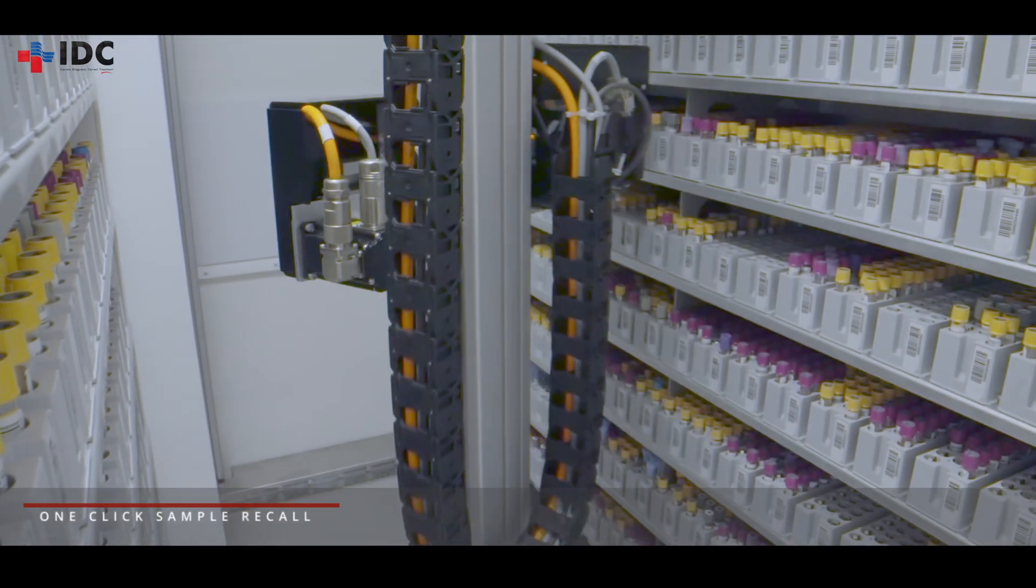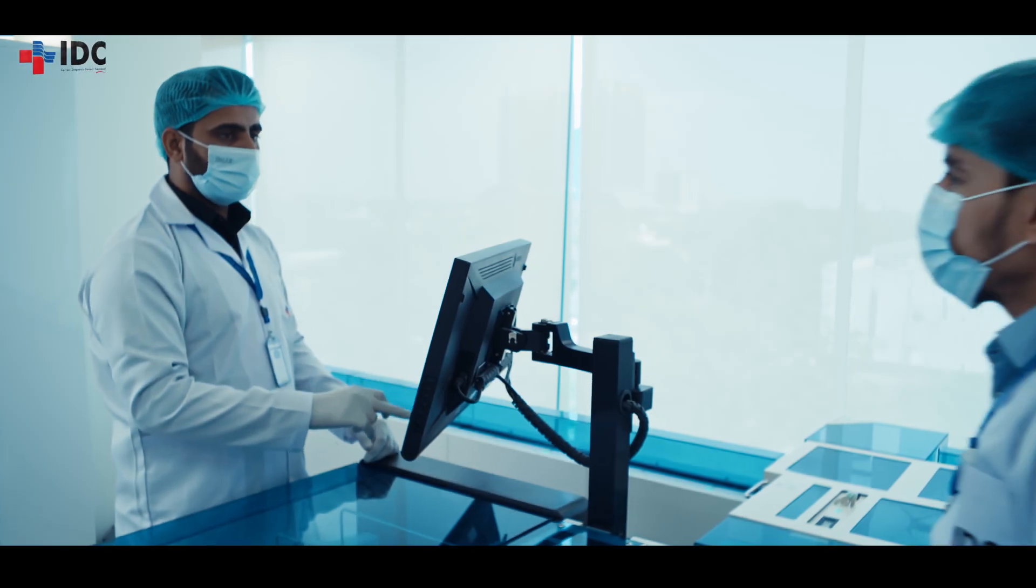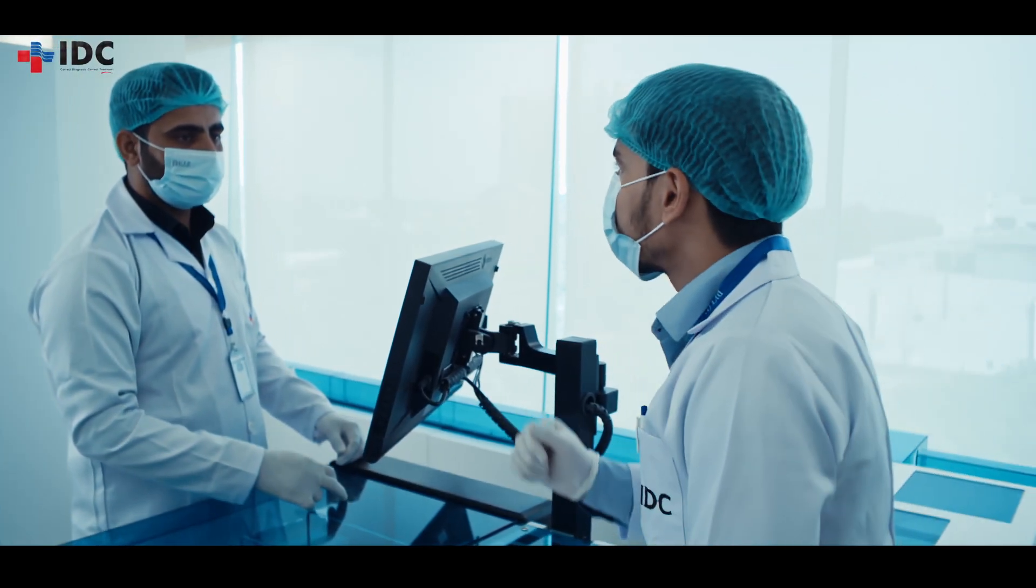The samples can be recalled at any time from the post-analytical storage, automatically with one click for retesting.